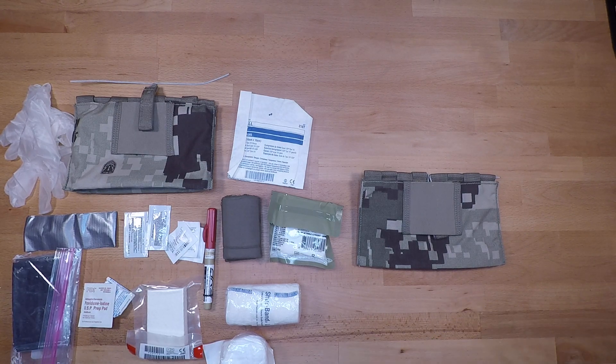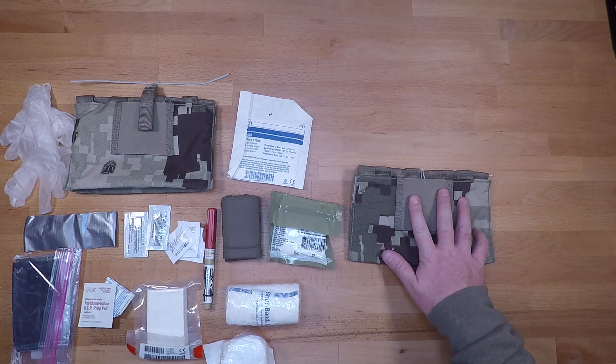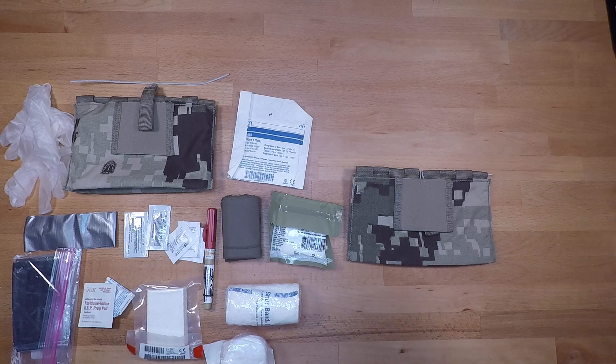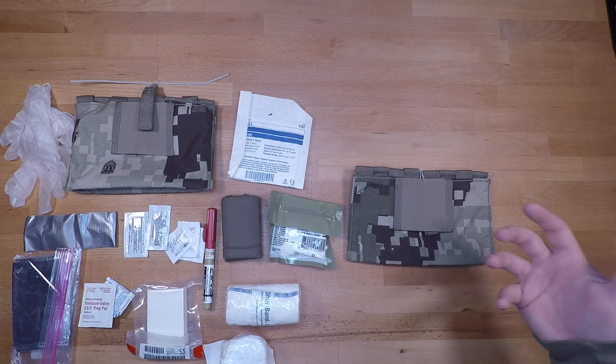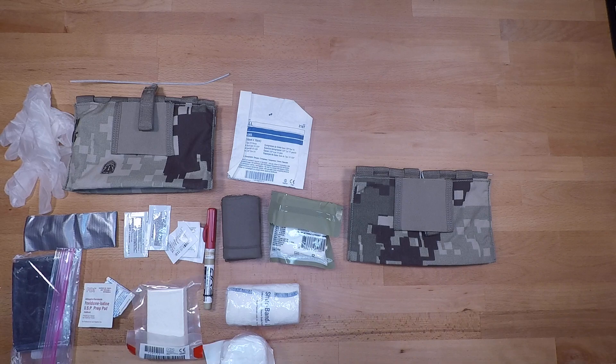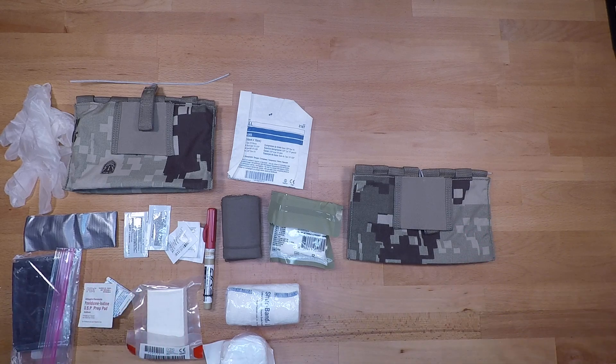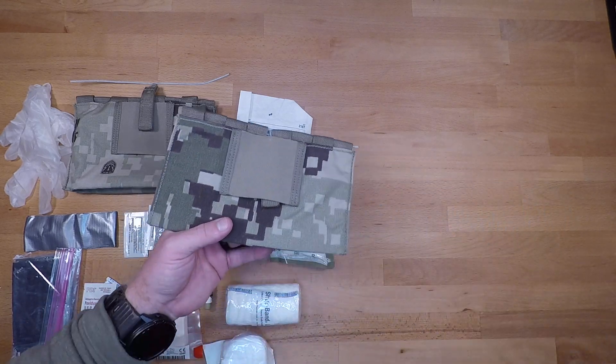Welcome back to another less than 10-minute gear review and setup. In this video we're going to be going over the London Bridge blowout med kit. This is going to cost you roughly around $85 and it does come in a couple of colors and camo patterns. I have the Medal of Honor Project Honor camo version — I thought that was kind of cool. I actually had these med kits thrown in a duffel bag in the back of my vehicle for use in the event I came across some type of situation where I need to employ them, which I'll highlight at the end of the video where I think some of the downfalls for this pouch are. With that, I'm going to dive right in.